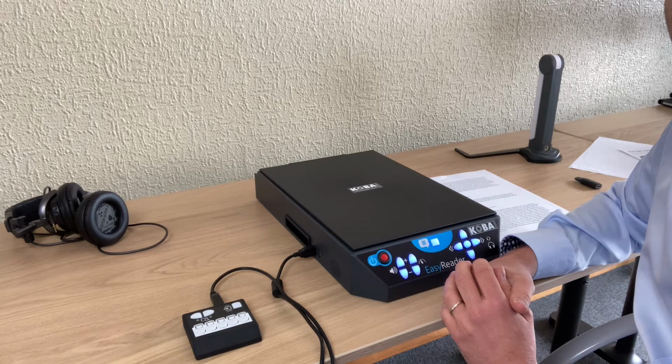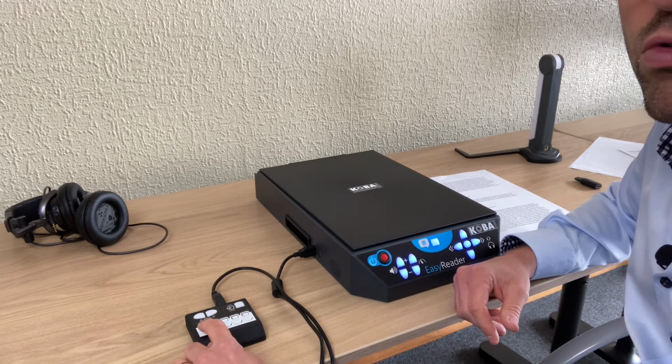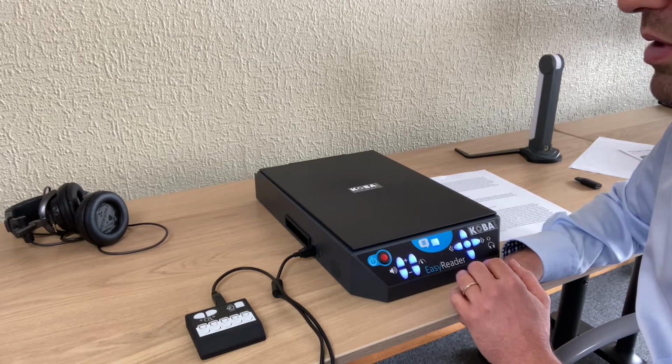This position is occupied. Press again to confirm. It's still occupied, but I would like to save it on that position, so I press to confirm. Ready. Okay, so it's ready.